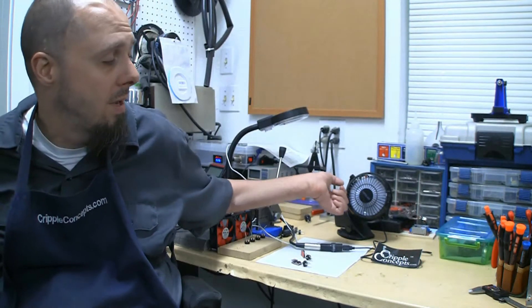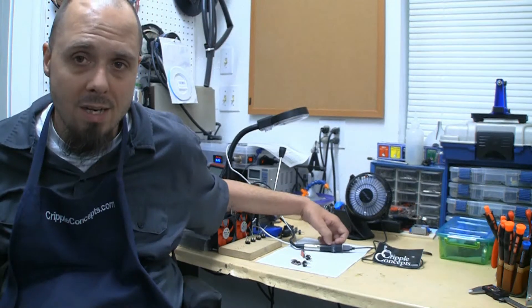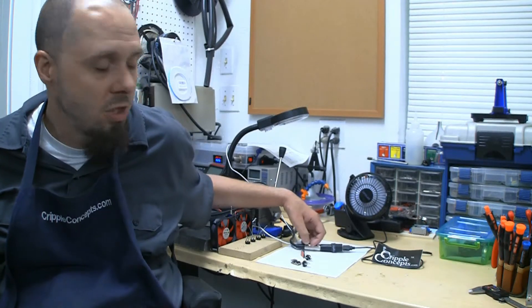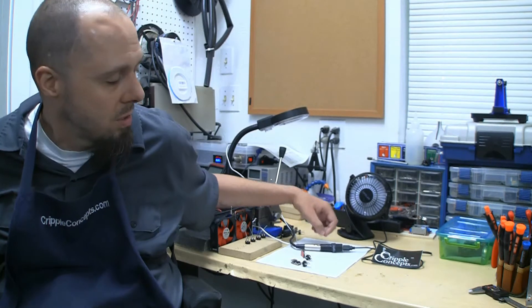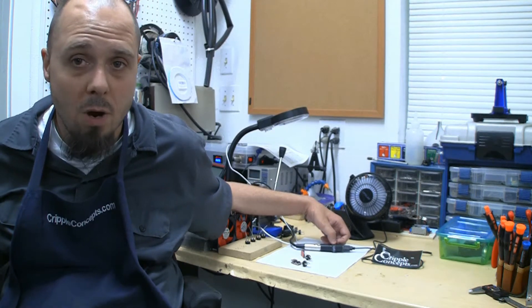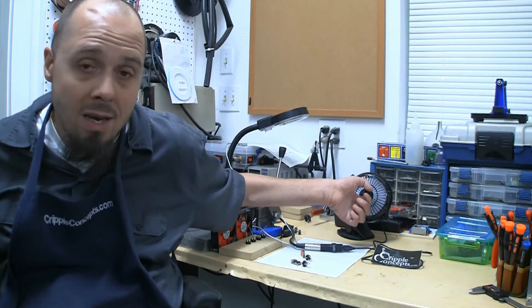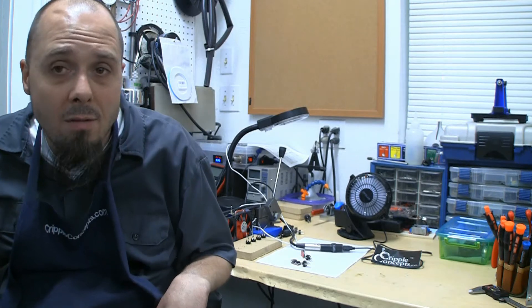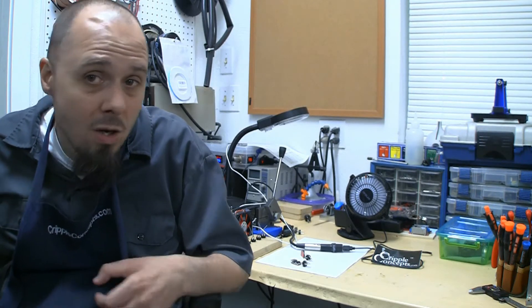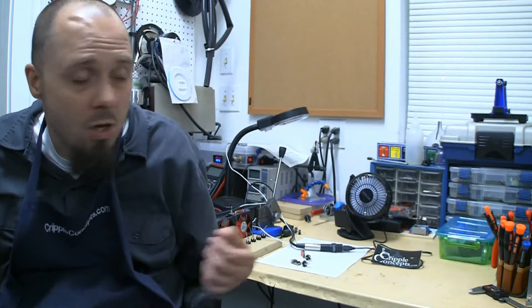But another alternative is a simple fan. You can see I've got a charger back here on my test plug — this basically emulates the charge port on your chair, 24 volts. The charger I've actually been using to charge my own phone, and then just a USB fan plugged into it. They actually kick off a decent amount of air. So if you need to keep cool in the summer, you can do more than just charge your phones with these little USB connectors.